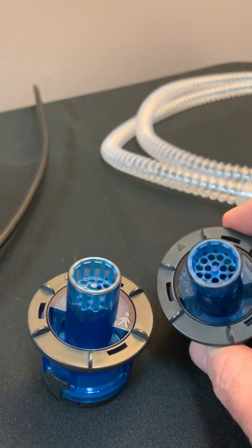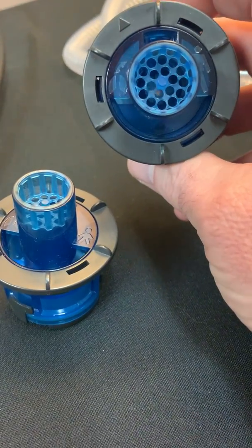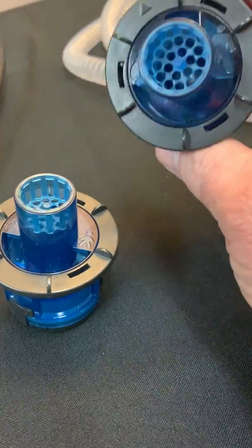Now the use of these valves do not have anything to do with the size of the patient or the age of the patient. You want to use these valves based on the parameters.